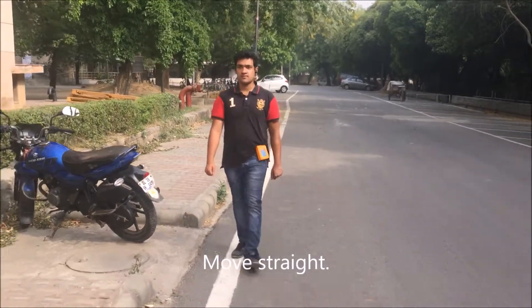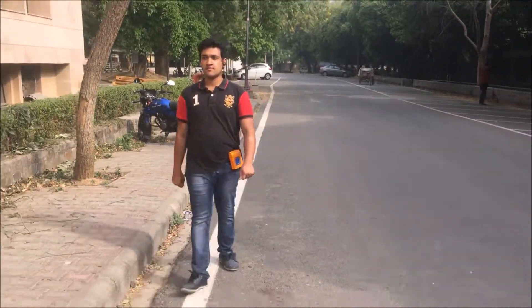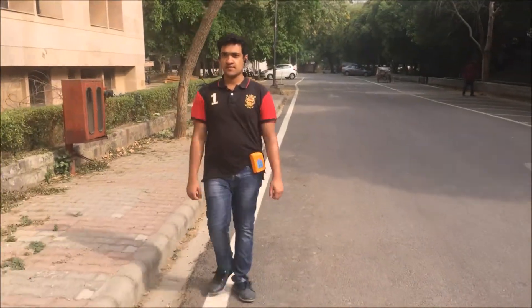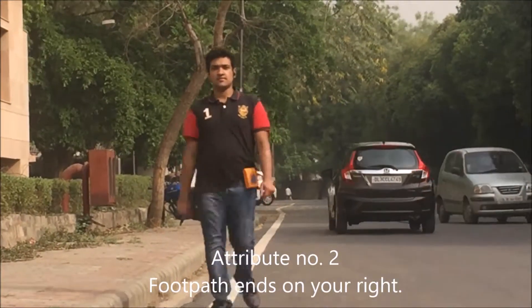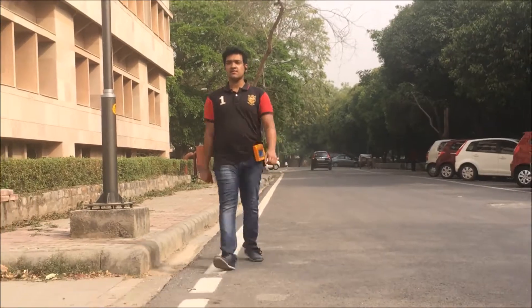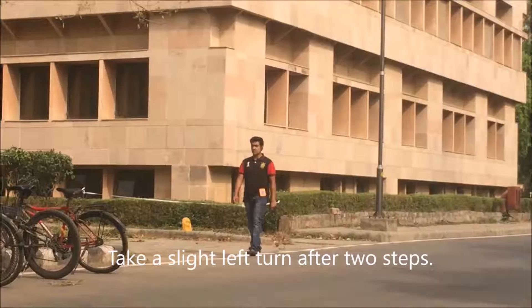Move straight. Footpath ends on your right. Take a slight left turn after two steps.